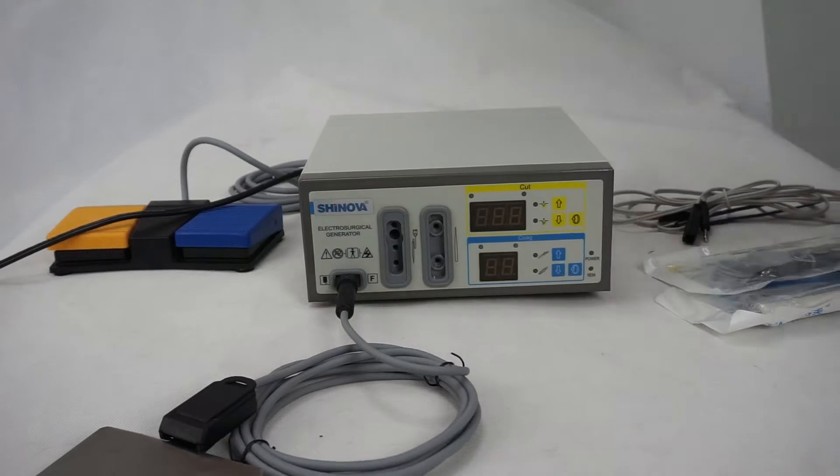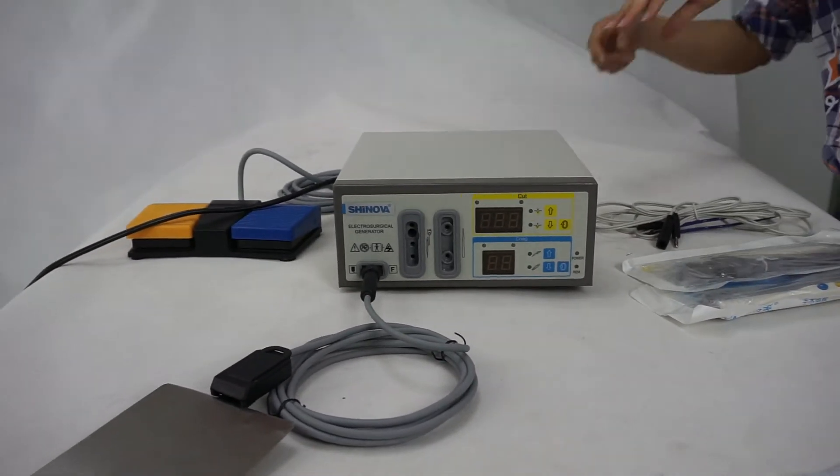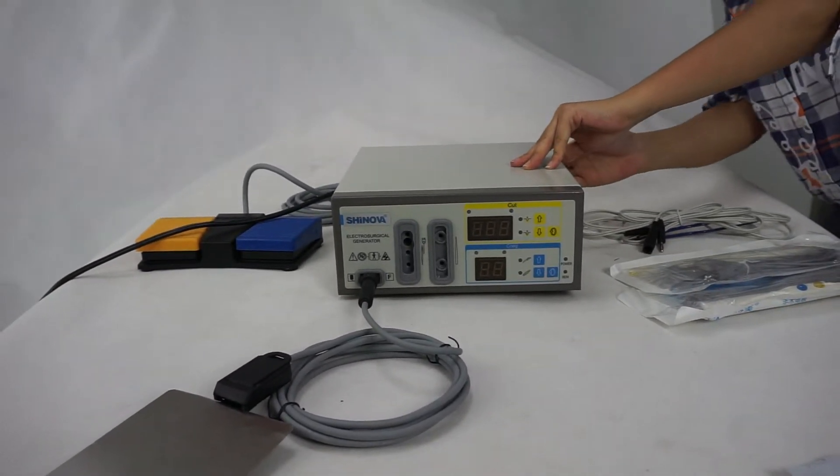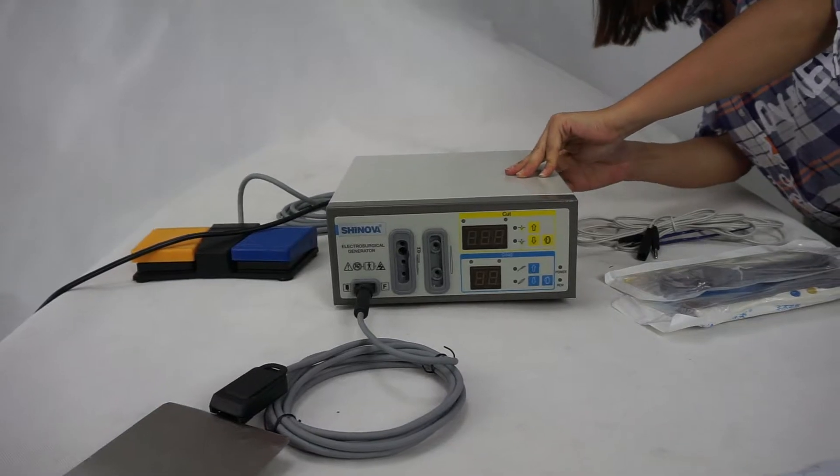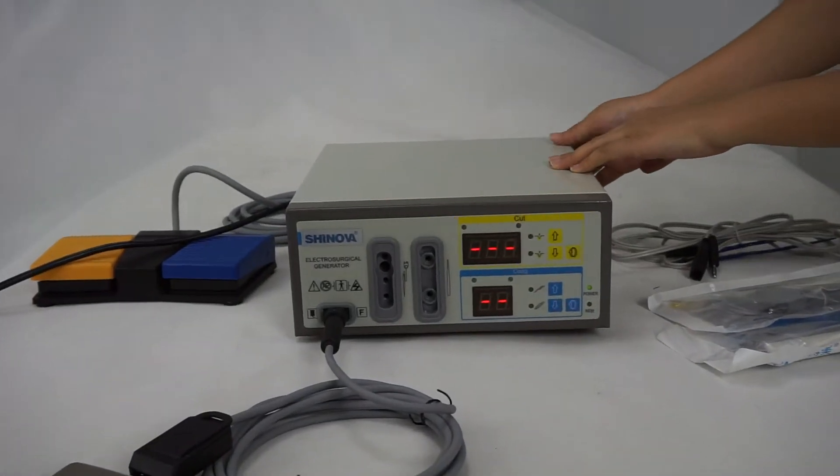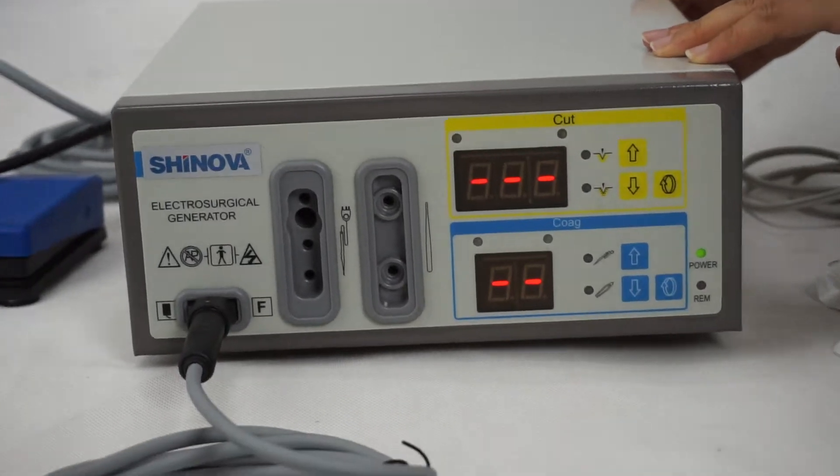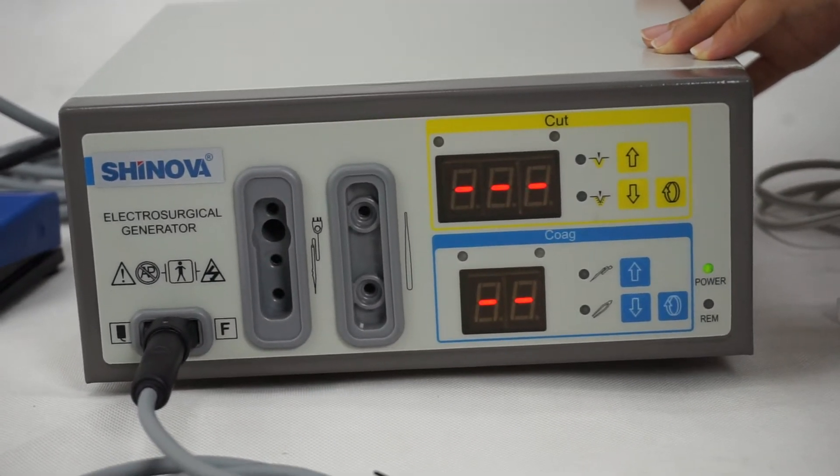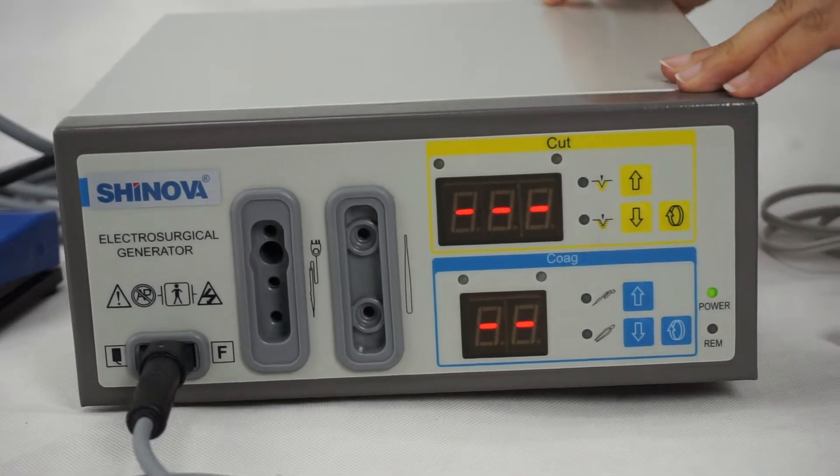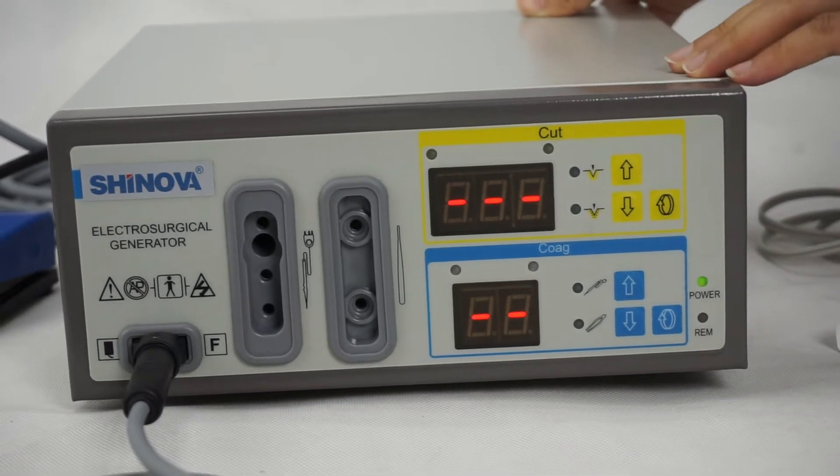Now let's start the machine up. Press the power switch. And you will see the data indicator light. Wait seconds.